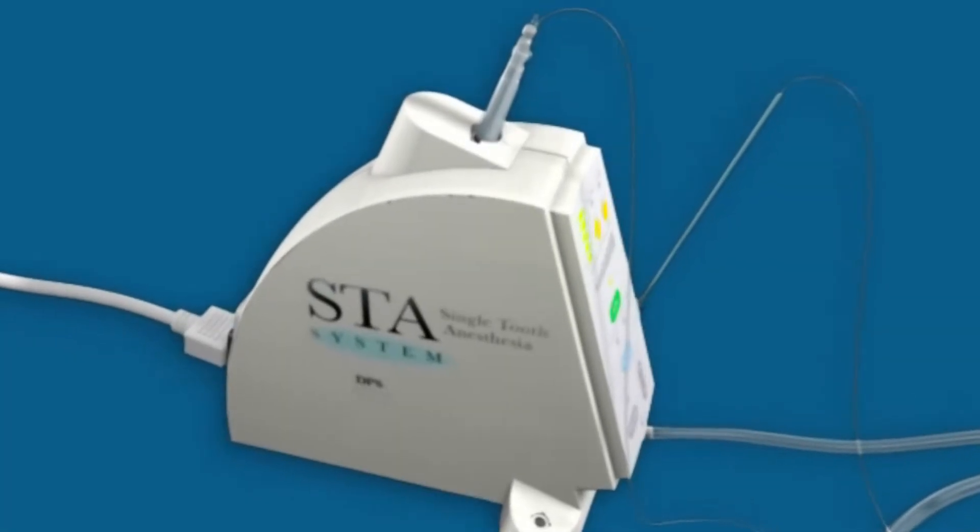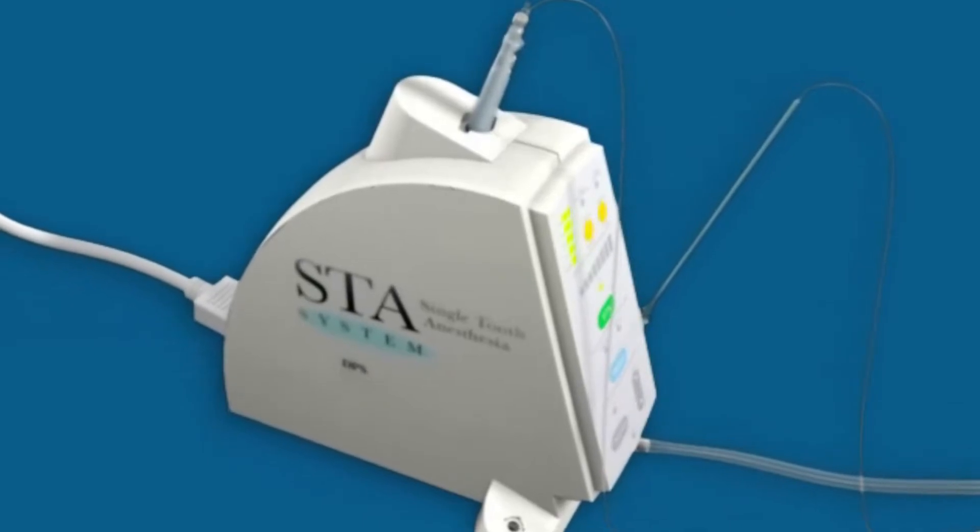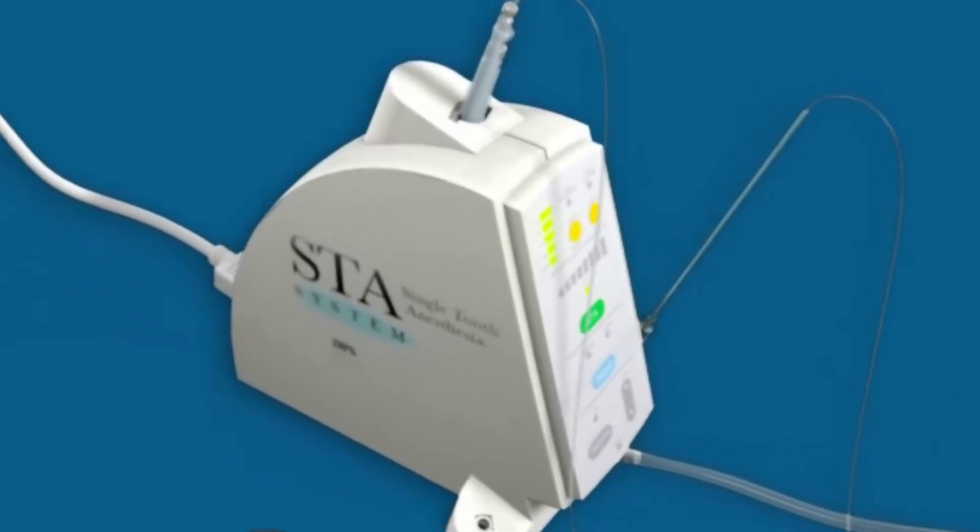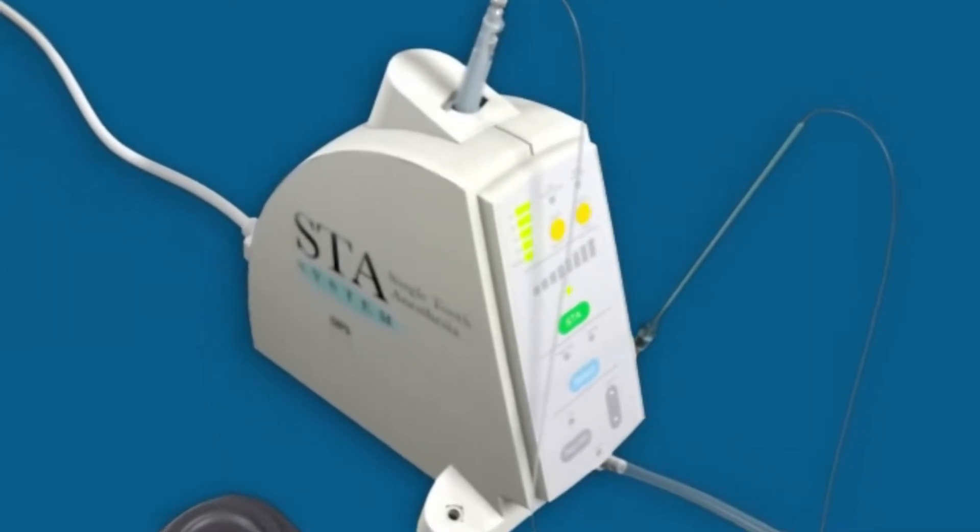This is a computer-controlled local anesthetic delivery system, or C-CLAD system for short. It represents a technological advancement in a new class of delivery instruments for dental local anesthesia.